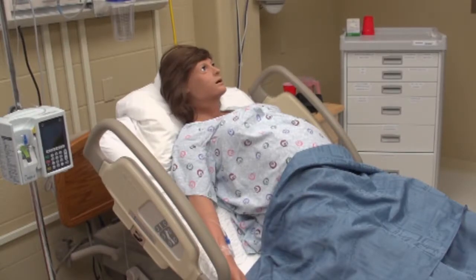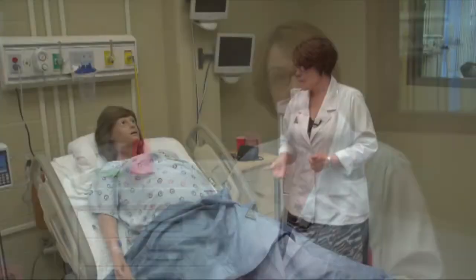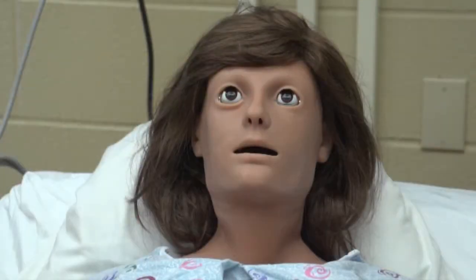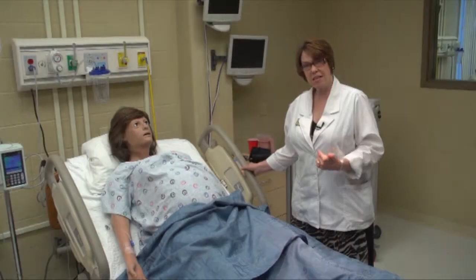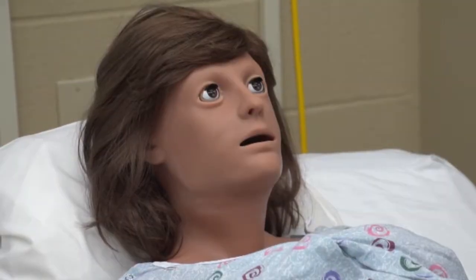We're talking today about simulation that we use at UND in the College of Nursing. And simulation as a general tool is used to provide clinical experiences for students in a really safe environment. So this is our newest family member. Her name is Victoria. She's our birthing simulator. Some of the things that she can do for us: she blinks, she responds to questions.